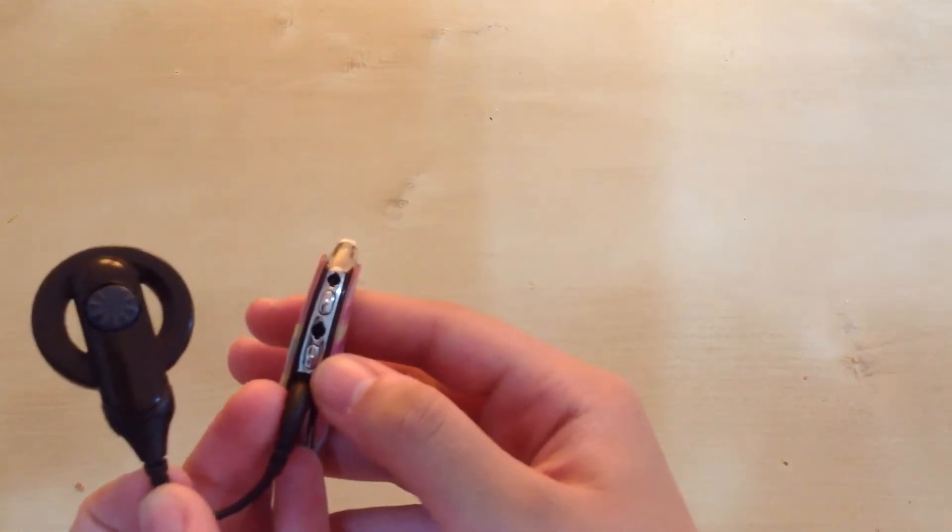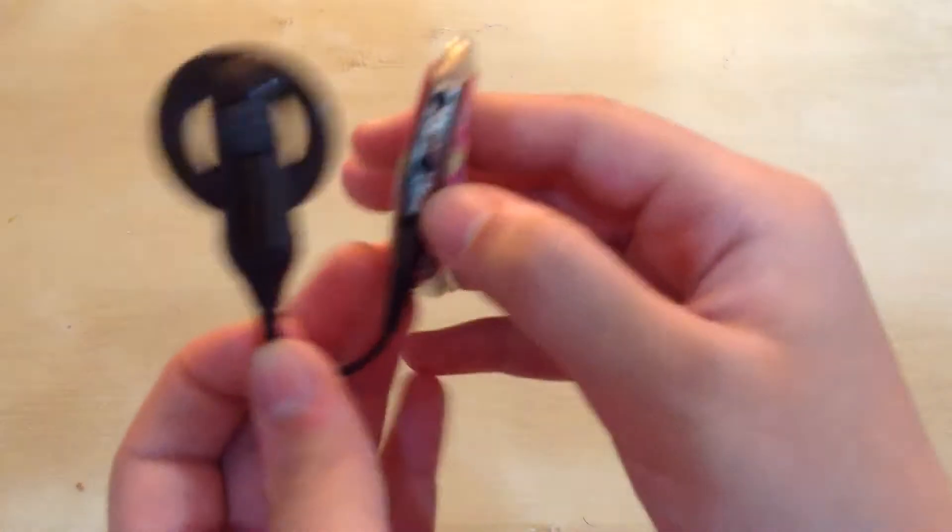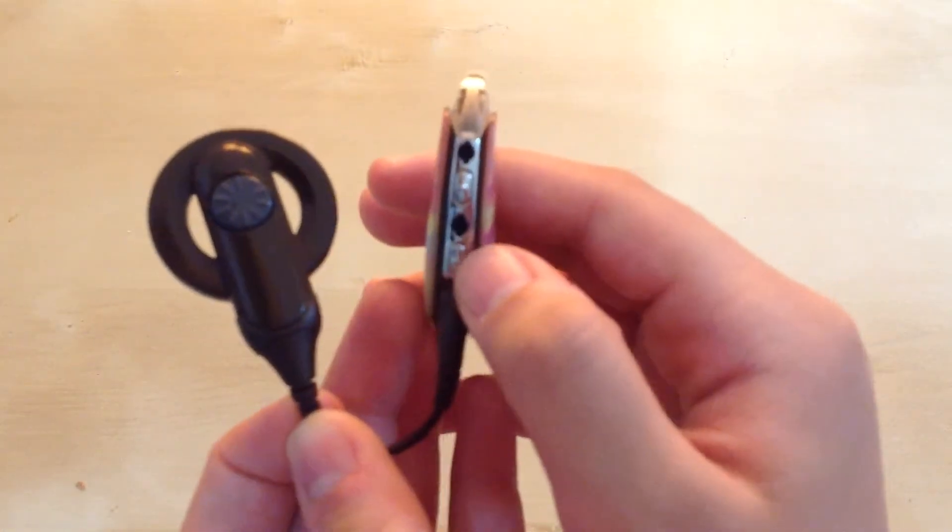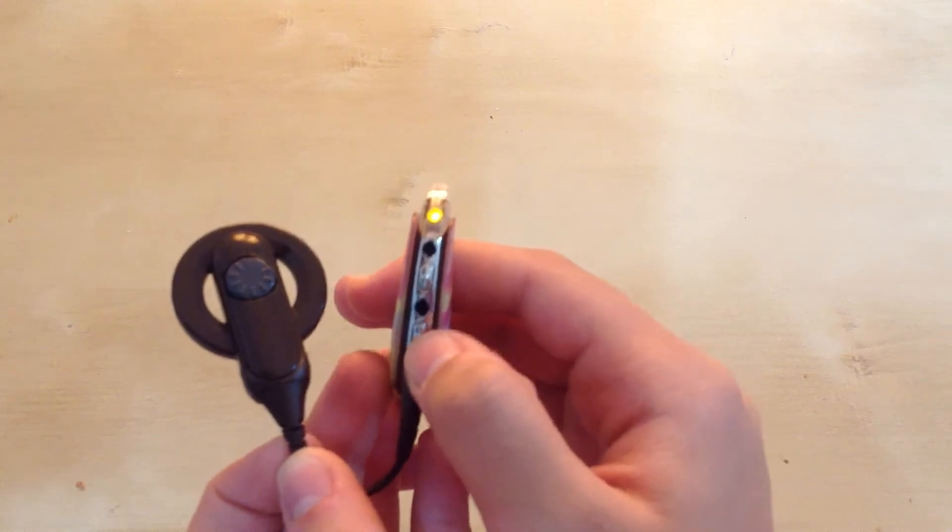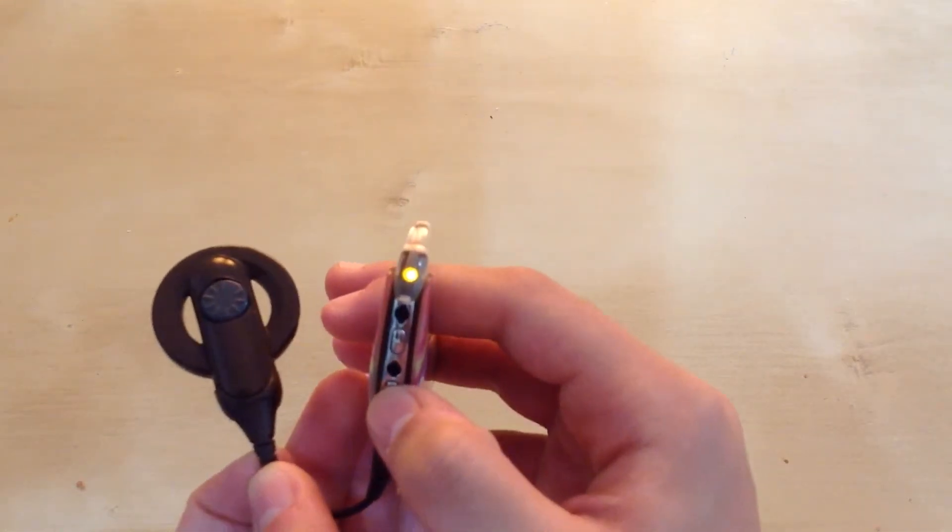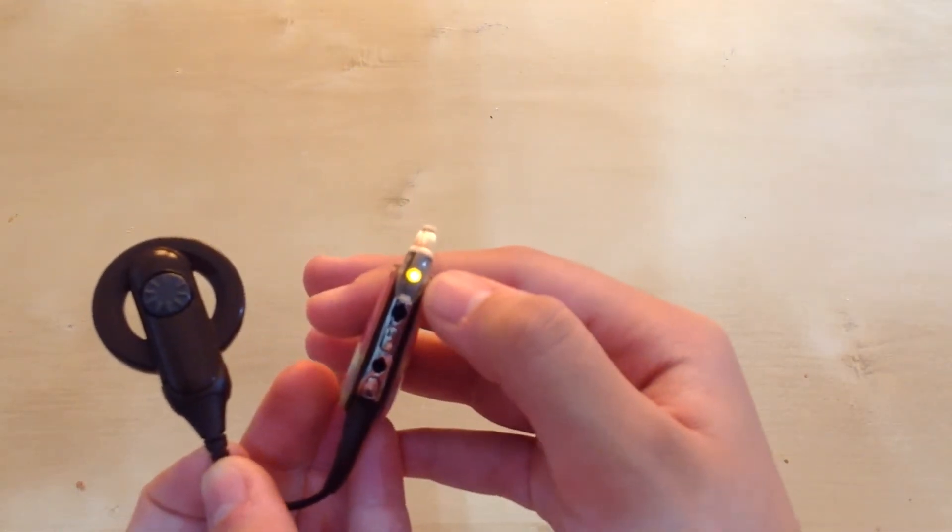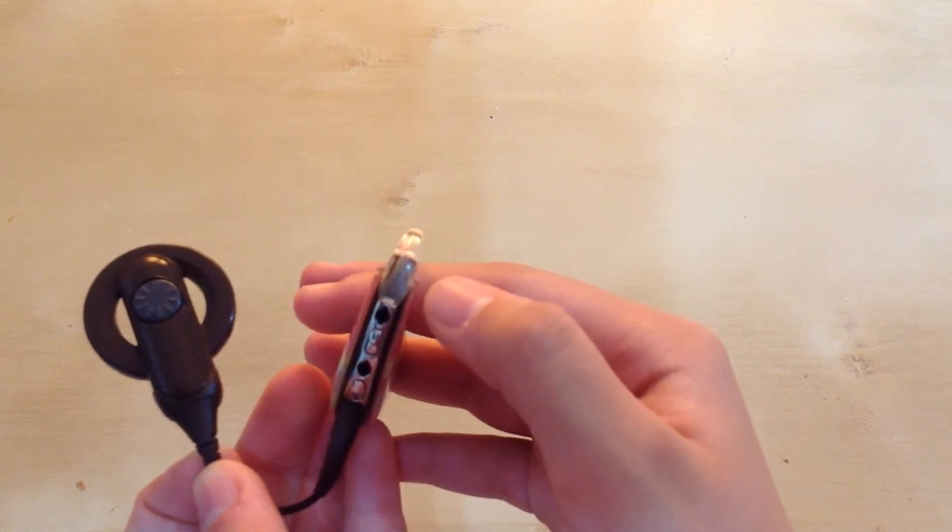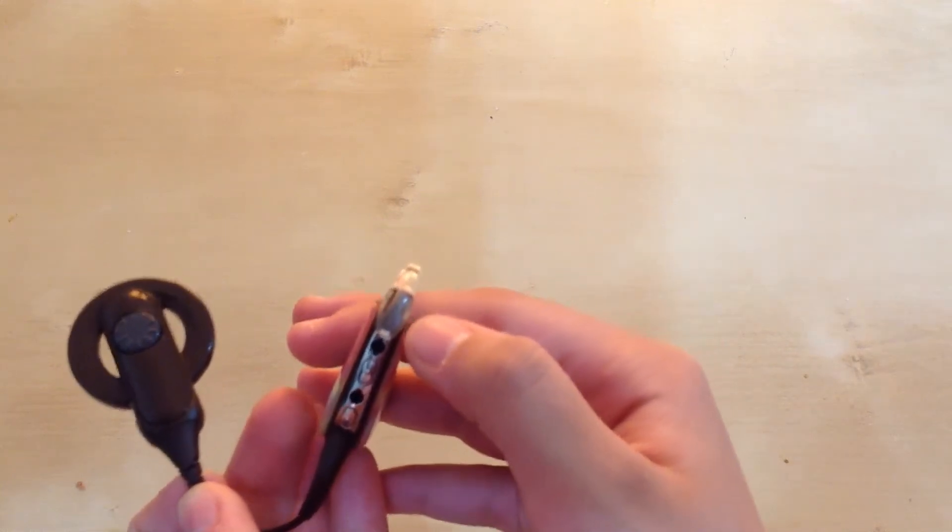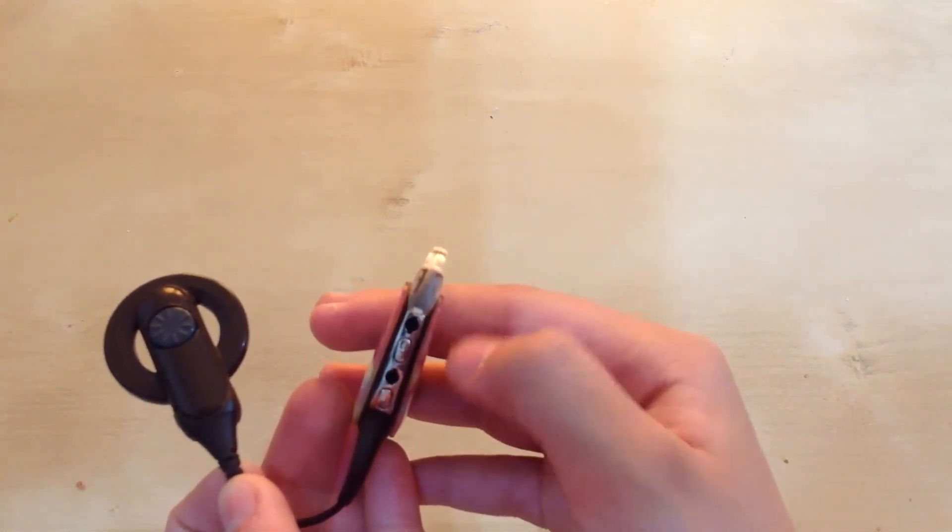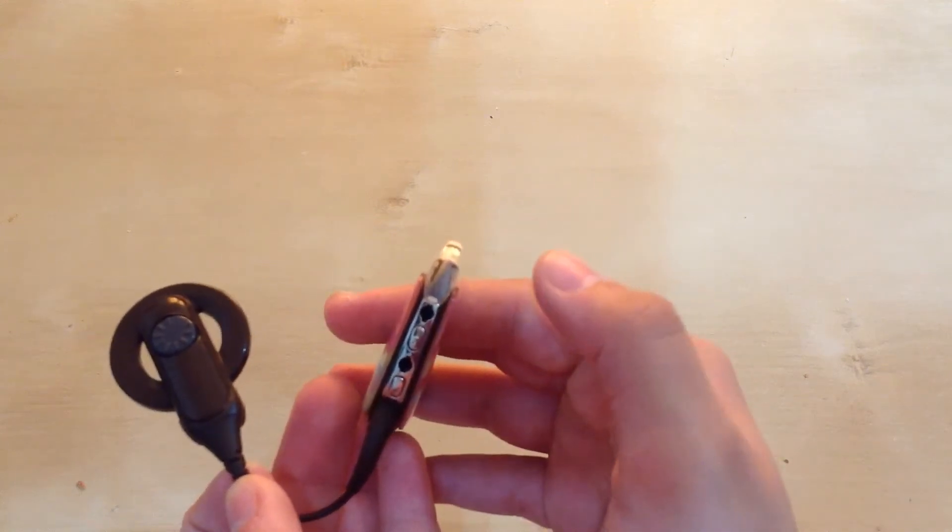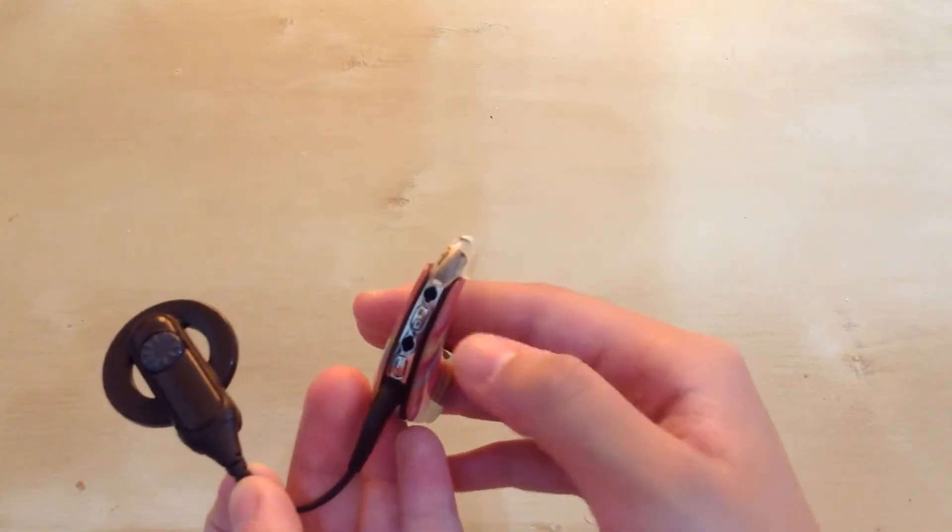Did you see that when I turned on the cochlear implant there was only one green light? It only flashed once, just a green light that went away, and then the orange light came. That was because it was on program one.